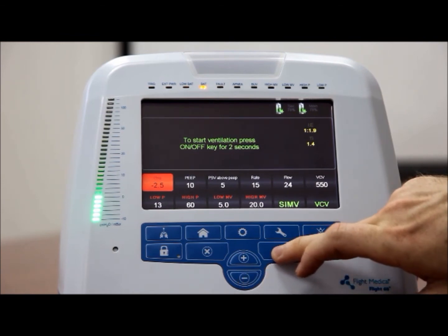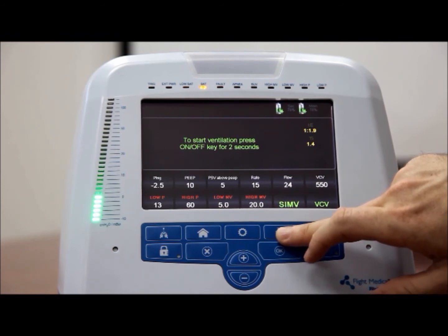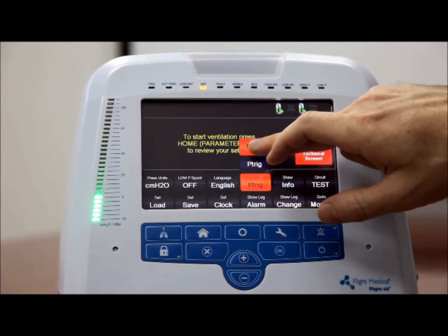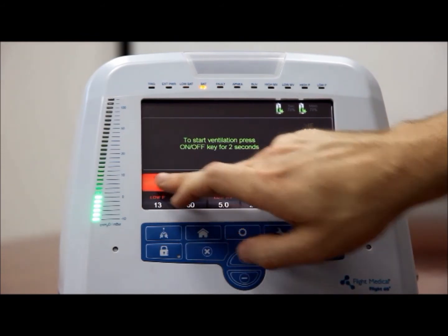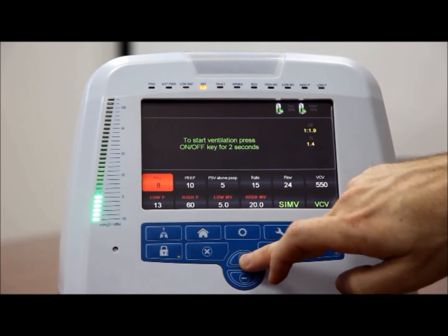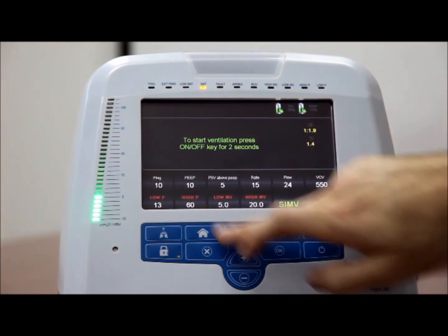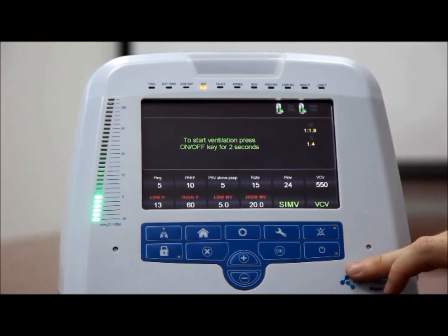Flow trigger level, F-trig. The F-trig setting determines the trigger sensitivity. The flow trigger level is displayed in the F-trig button and can be adjusted. To set the F-trig value, tap the F-trig button and adjust the F-trig value using the plus and minus button.